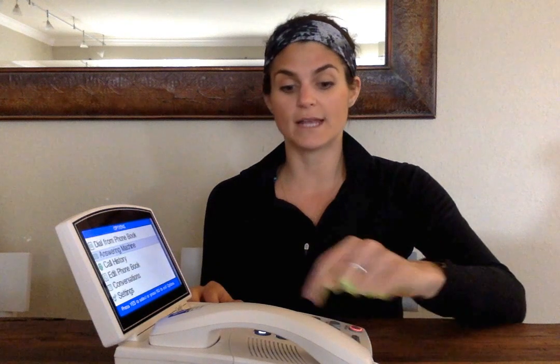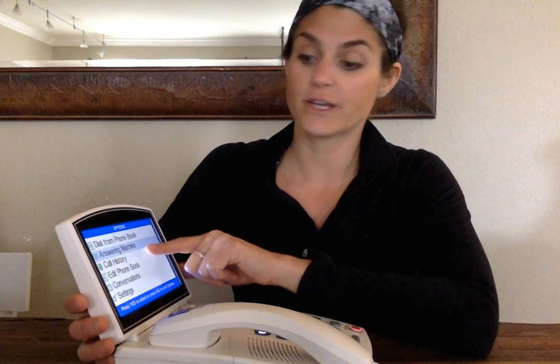Another thing is if you have voicemail, meaning maybe you dial a number to get into your messages at home. Here, a lot of people hit *99 or *98 in order to get their messages. If you wanted to leave everything the way it was and continue to just hit *98, but wanted to be able to see what's being said, just make sure you use this phone when you're checking those messages. But for this one, if our answering machine, we're going to go ahead and hit yes.